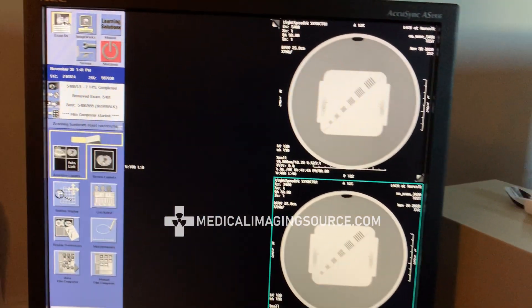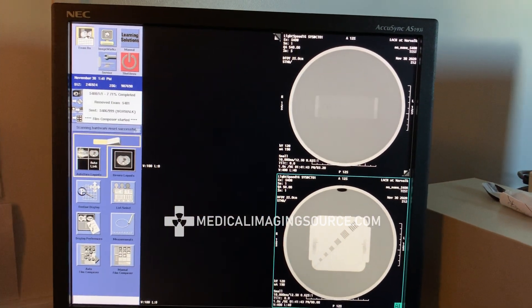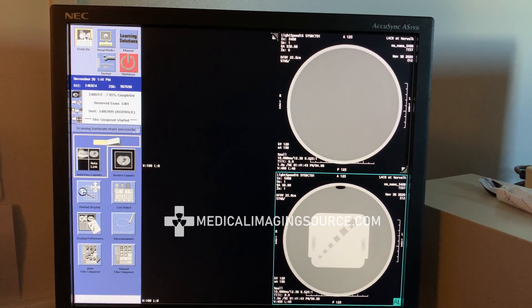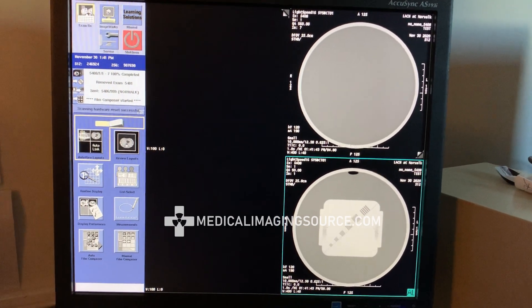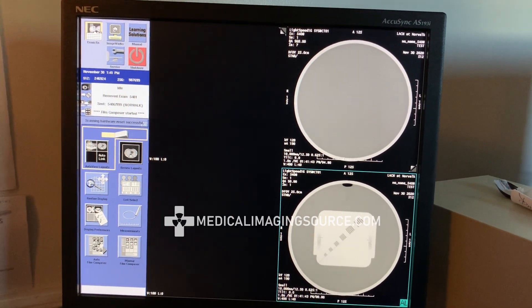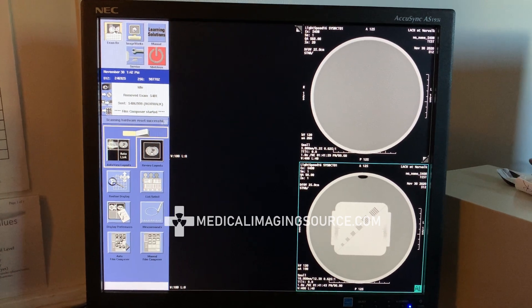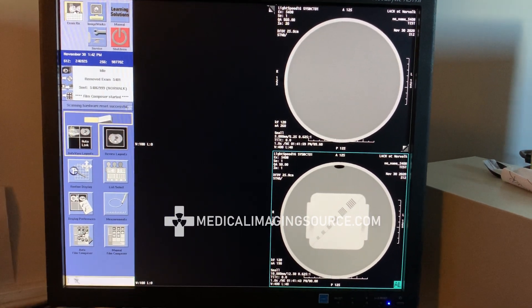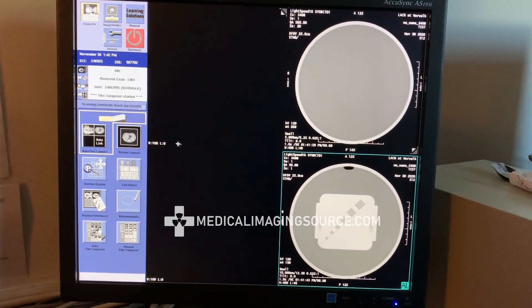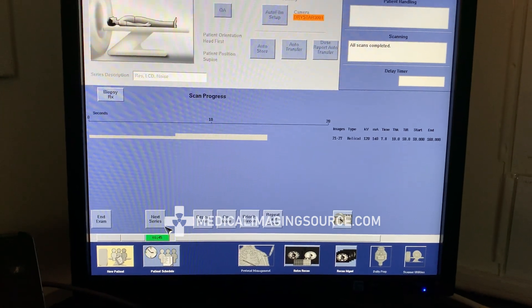If you have your screen on the right side set to Auto, you should be able to see your current exams here. Just quickly review them for artifact or any anomalies. As you can see, my images look good and free of artifact. We're going to go ahead and click on the next series.